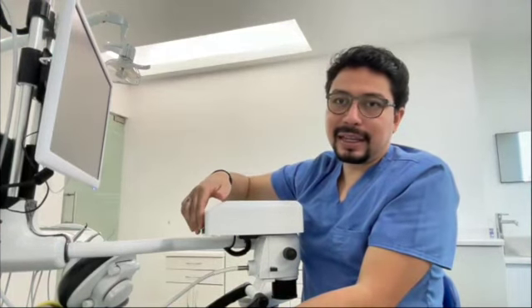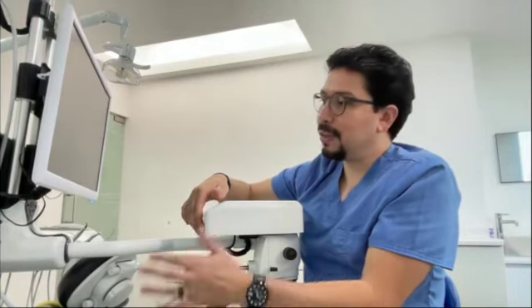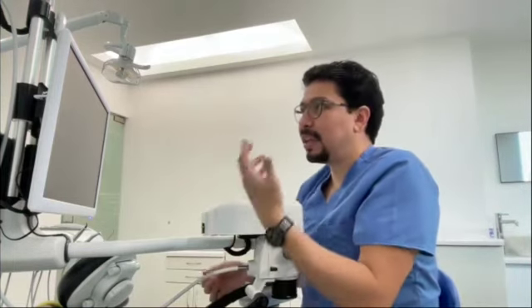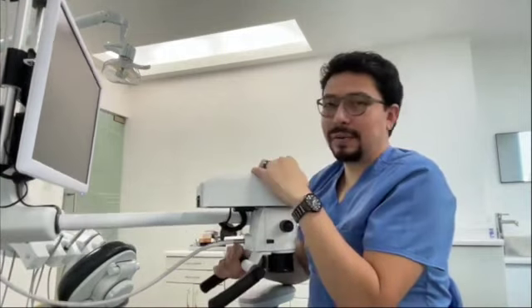And I can take the screen going down as well. So this is a motorized system. The vertical angulation of the screen, you can change it with, it is a manual system. It's not motorized, but we will manage that for having the best quality of 3D images.